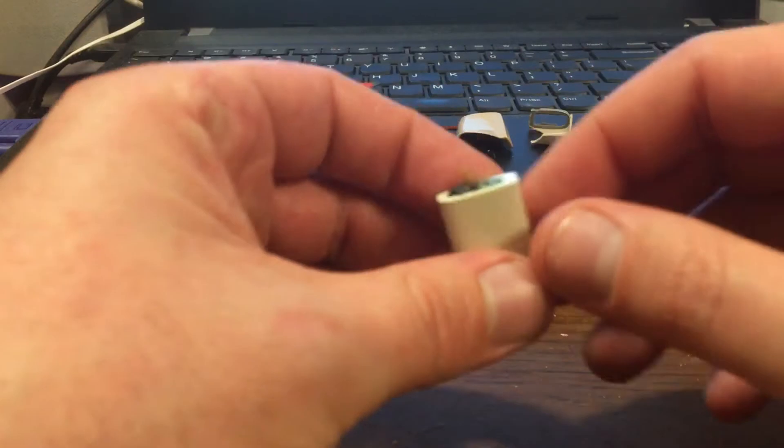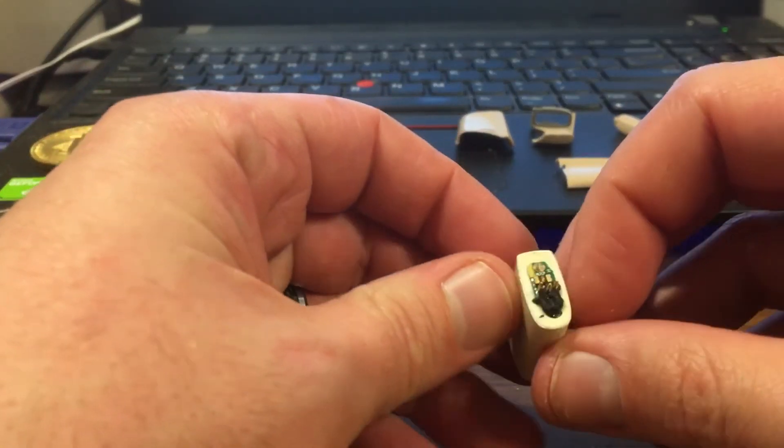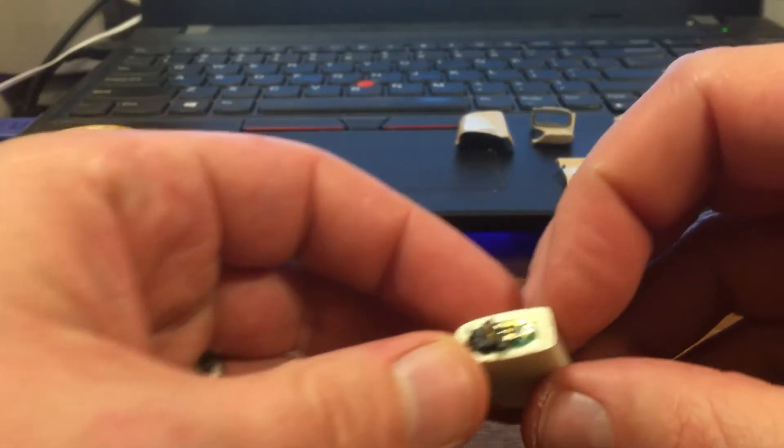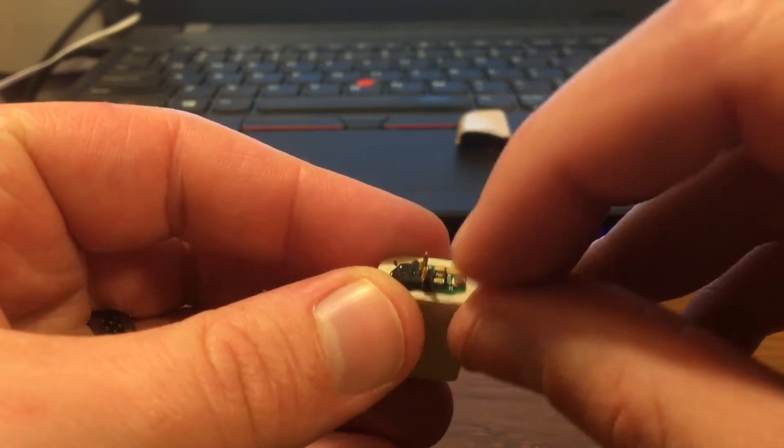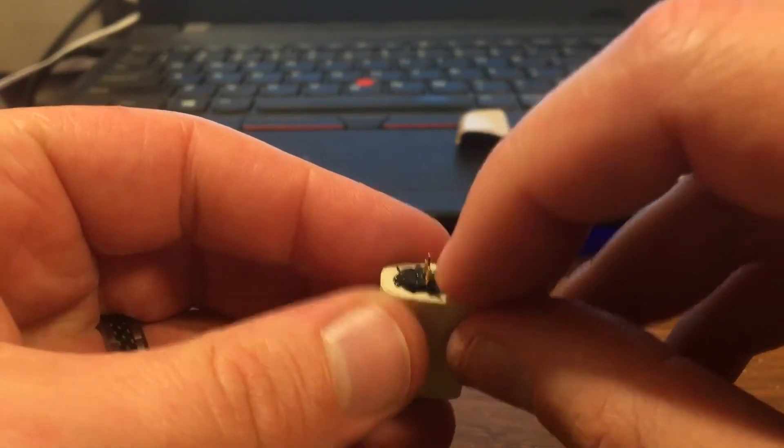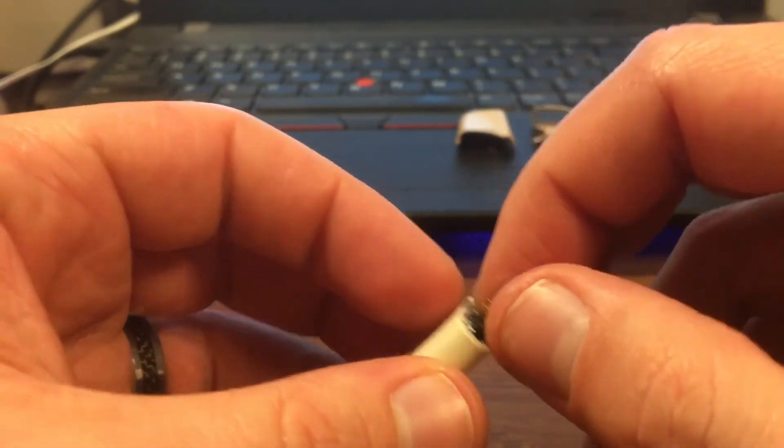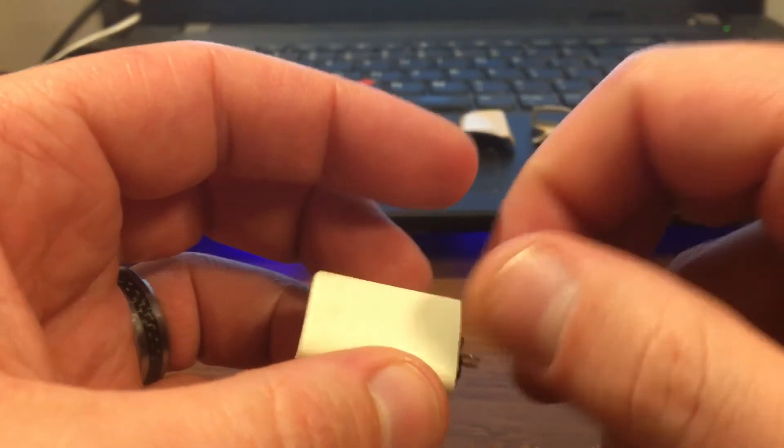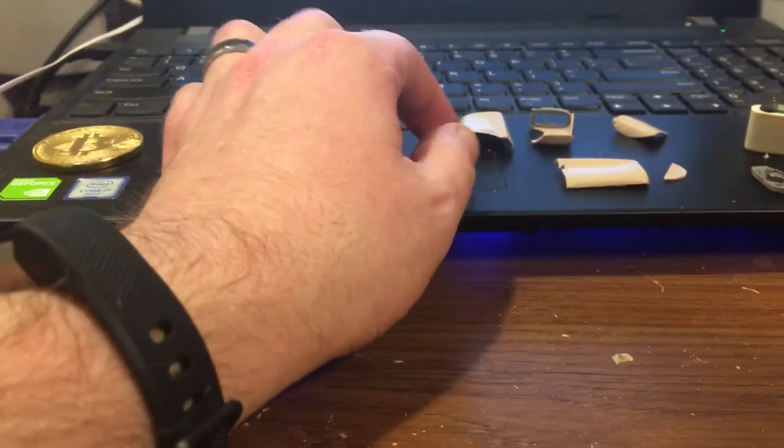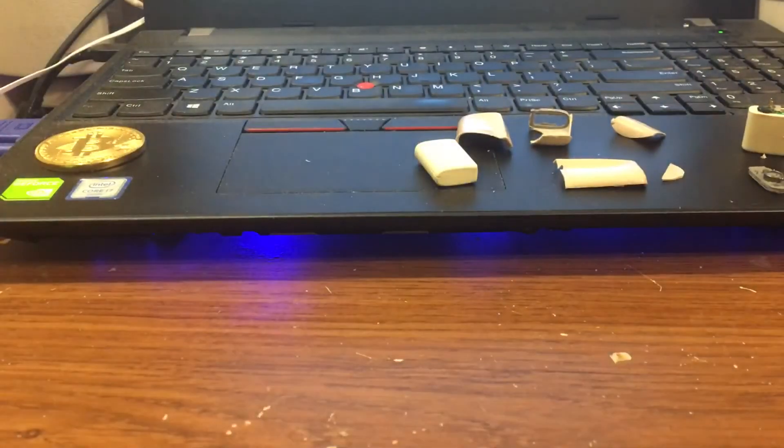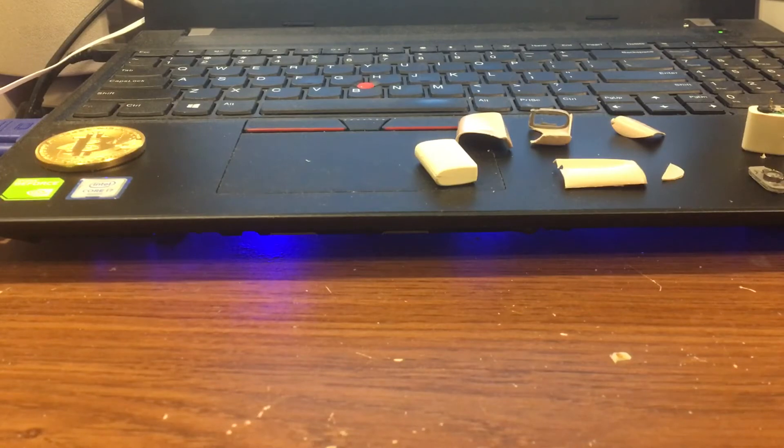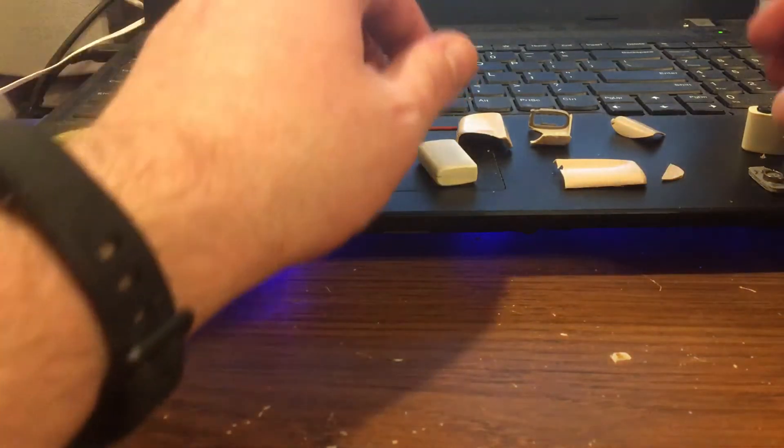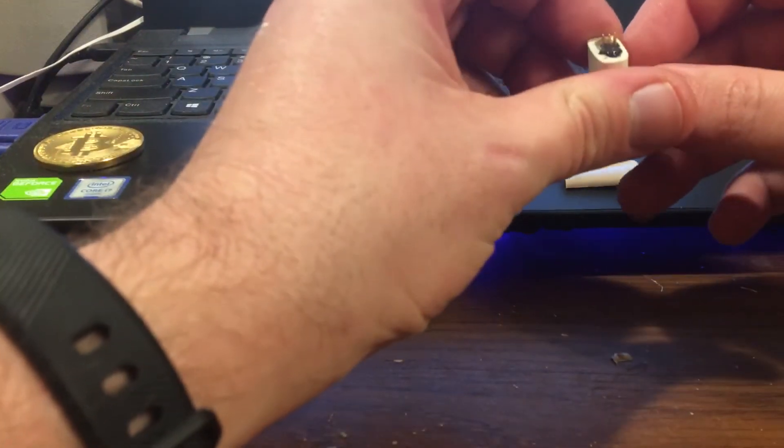And this one over here, I got moisture in there. I think she put it in her mouth and we didn't get it out in time, or no one let me know what happened. So that one's dead, which is kind of unfortunate. But hey, that's just how she goes. I want to show you what these things look like on the inside.